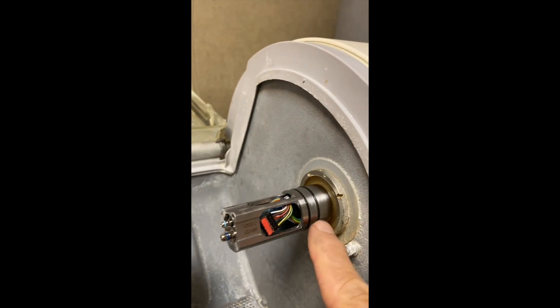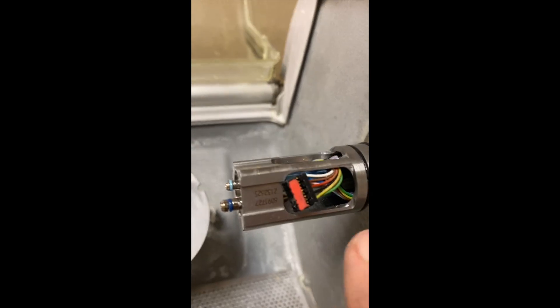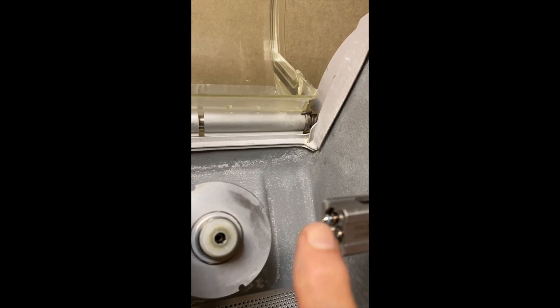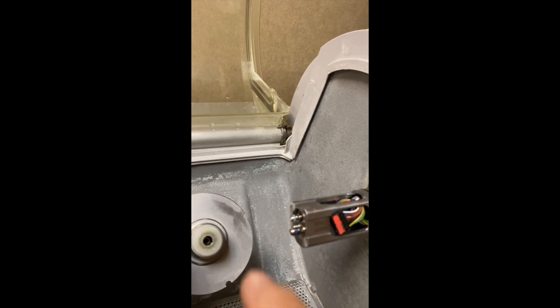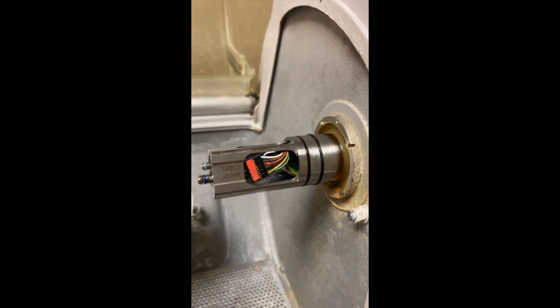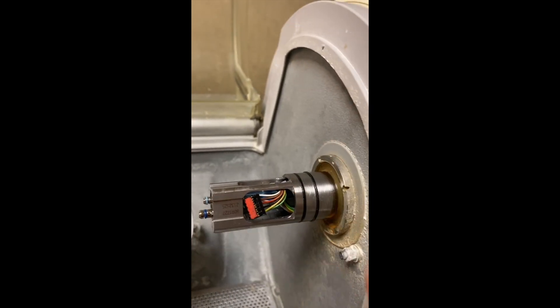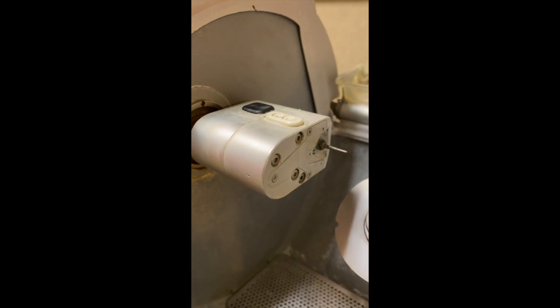I've taken apart this and cleaned up this shaft, but we have to pay attention to the orientation of this plug. I greased these with a grease that's used for silicone washers, and so we're going to take you through this. I'm going to put this side back together, but then we've got to go do this other side, and I'll take you through that process.